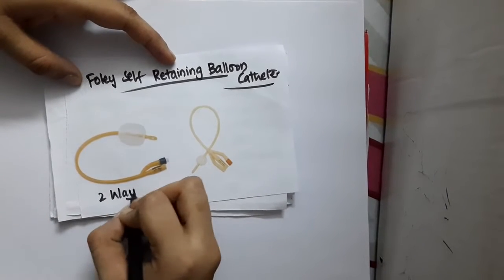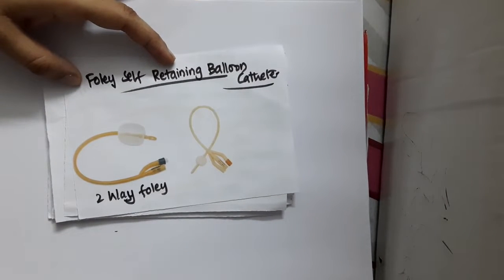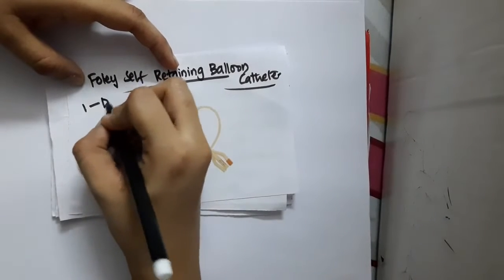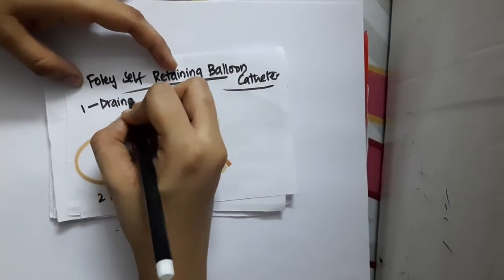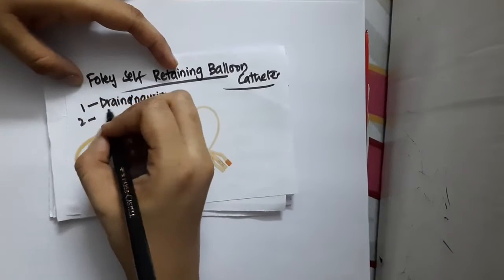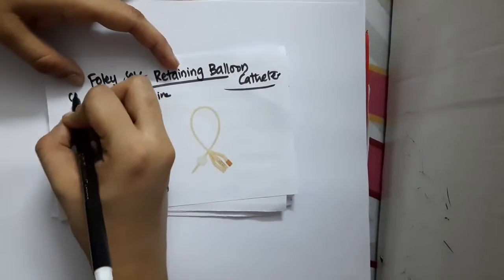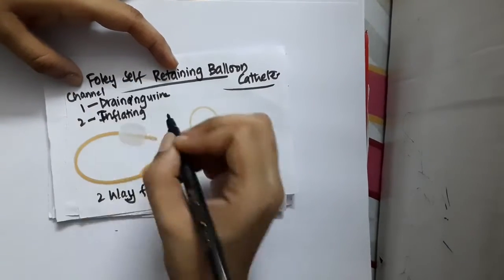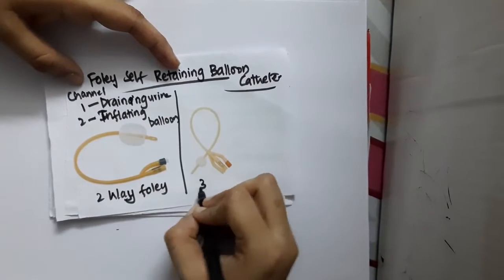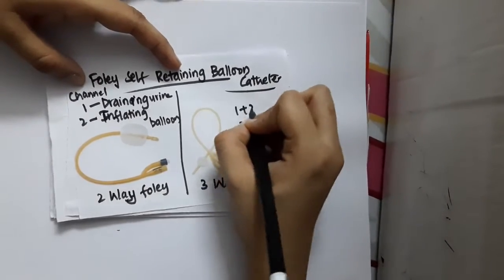First, we have the two-way Foley's catheter. It has two channels: one channel for draining the urine, and the second channel is used for inflating the balloon.